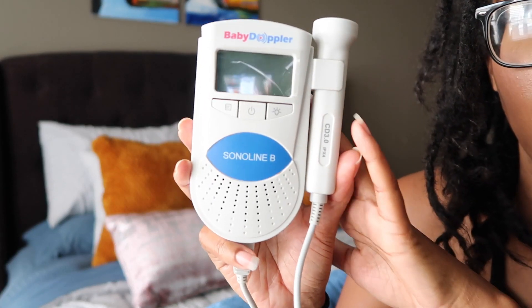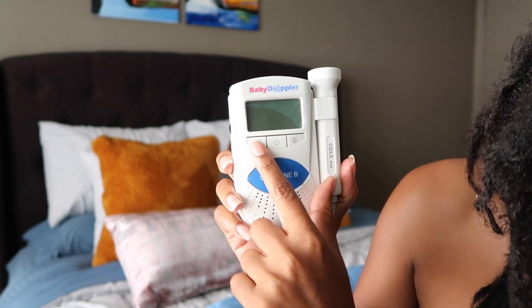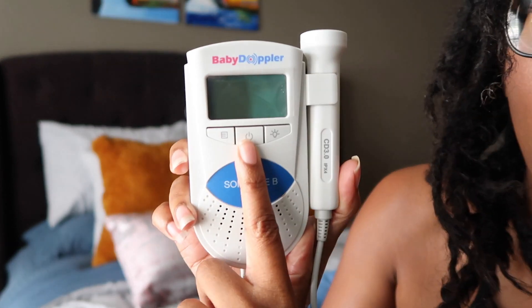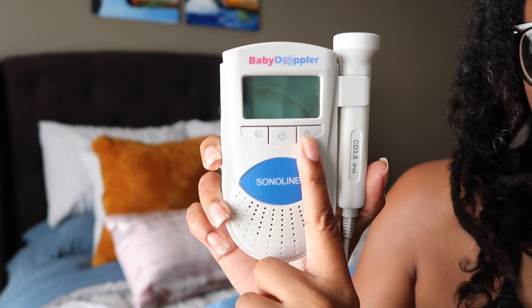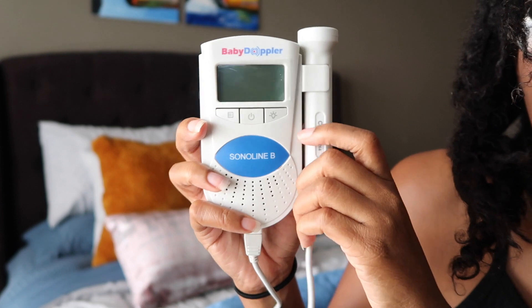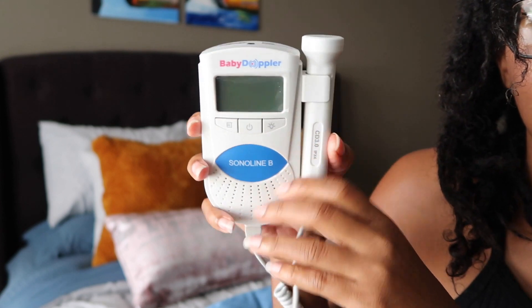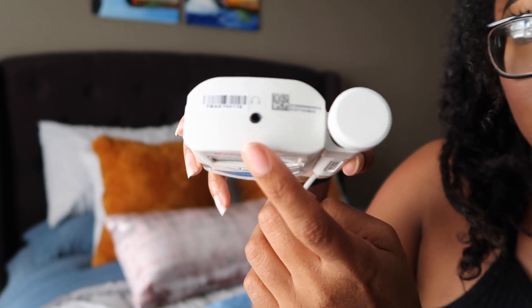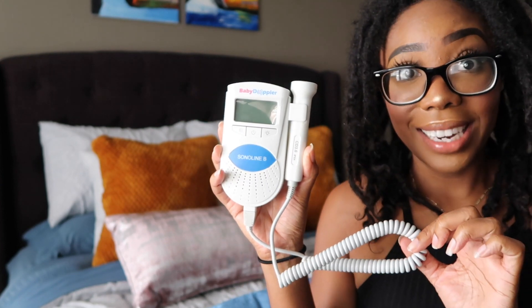I just wanted to quickly go over how this thing works. On your right side is going to be your mode button. The button in the middle is your power button. The button on the left is going to be your backlight button — so three buttons total. You have your speaker here, and your little probe which you just pull out and snaps back in. At the top, if you want to hear better, you can plug in some headphones.